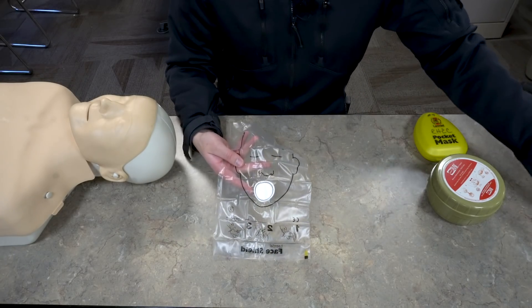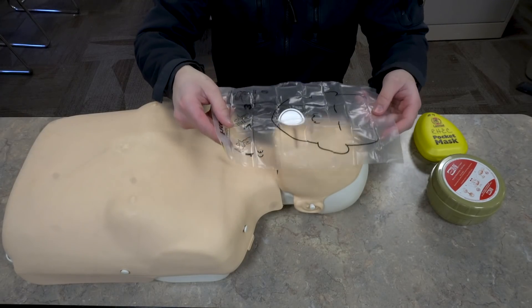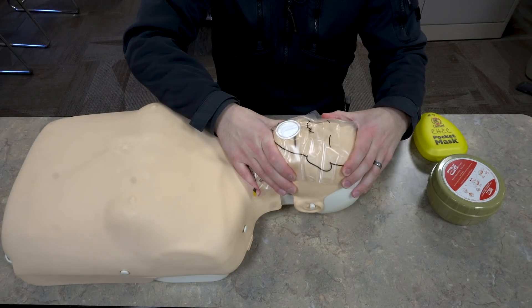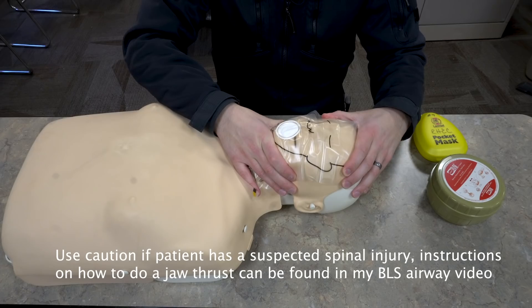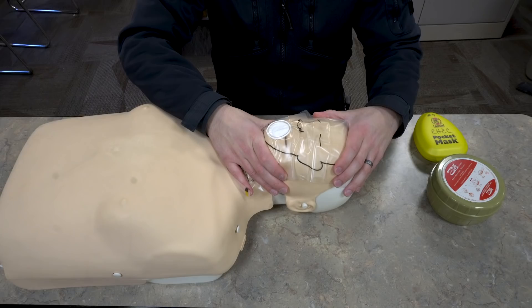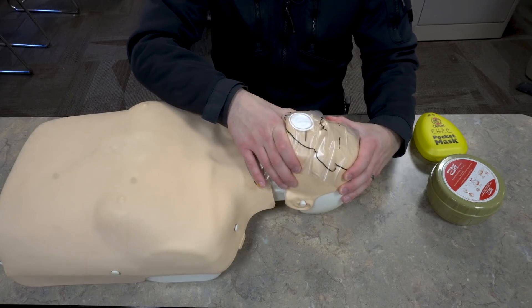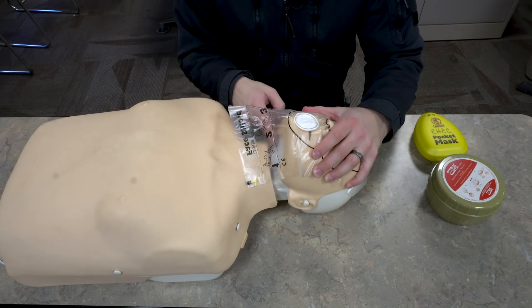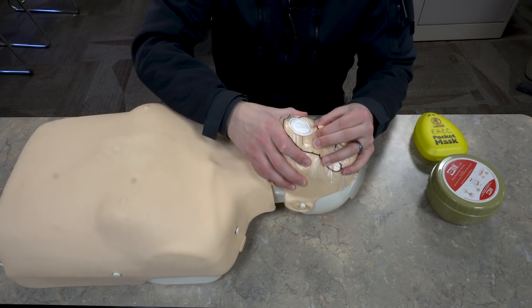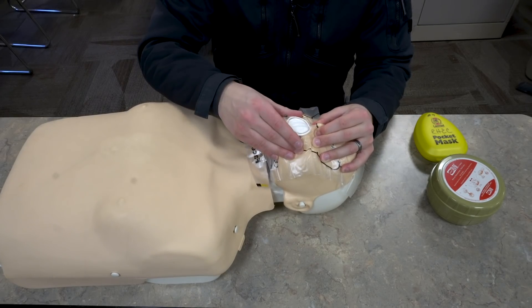To use this it's pretty simple. You have your mannequin here and you're just going to put the face indentation over. You're going to do what's called a head tilt chin lift — I did cover this in my BLS airway video, so feel free to check that out if you want to learn how to do some of these basic airway maneuvers. Essentially all this is is tilting the patient's head back, which takes the tongue off the back of the pharynx and opens that airway. Then you're going to pinch the patient's nose and take your mouth and create a seal over that section.